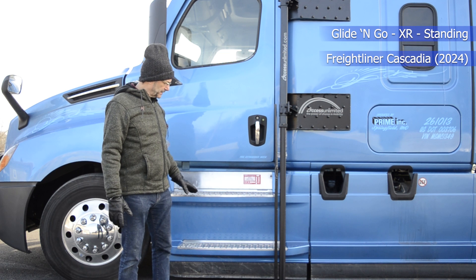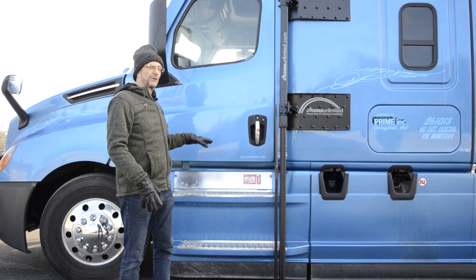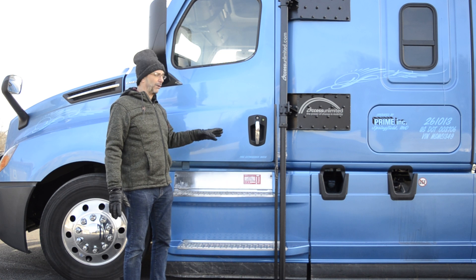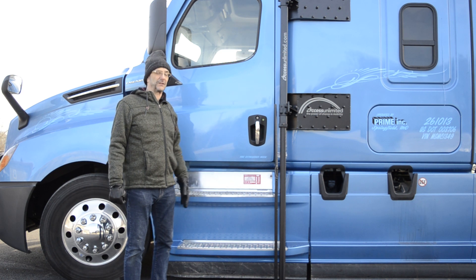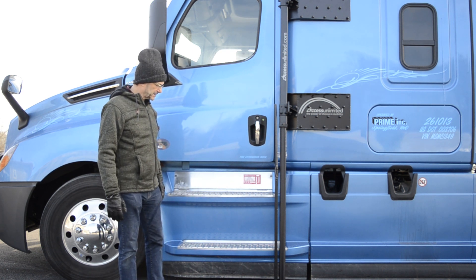The XR standing unit is basically for people who have a mobility impairment, have difficulty getting up and in, or have maybe some joint problems. The purpose of this video is really to show you the product itself. There are other marketing videos in the notes field below, as well as a technical install video that we will also have available to you.